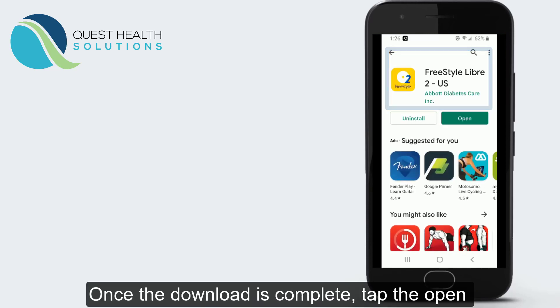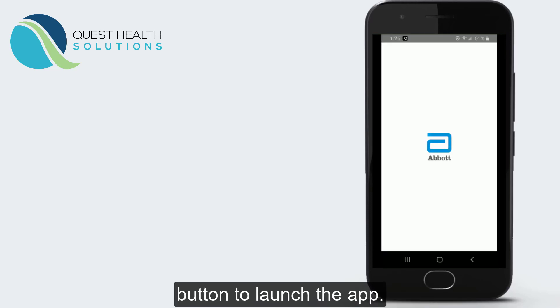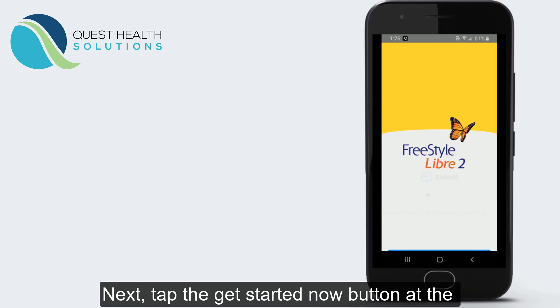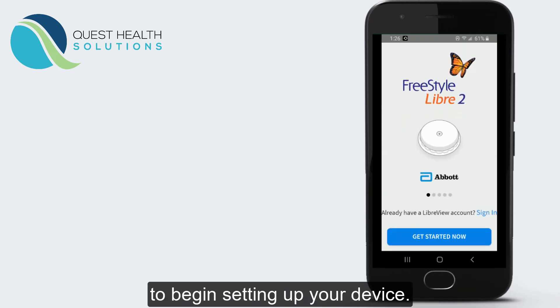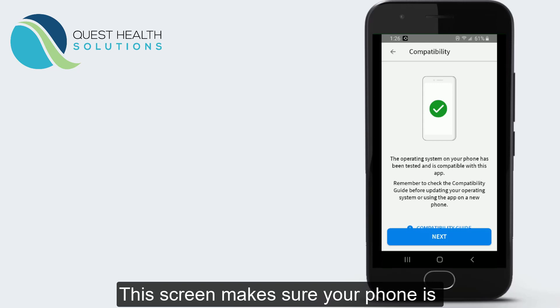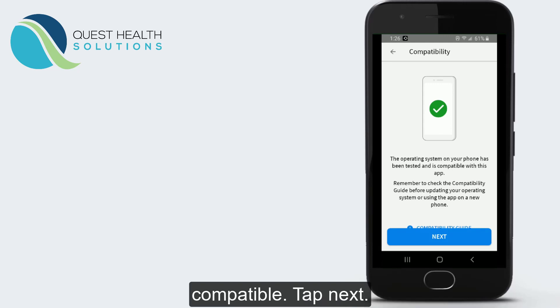Once the download is complete, tap the Open button to launch the app. Next, tap the Get Started Now button at the bottom of your screen to begin setting up your device. On this screen, make sure that your phone is compatible, then tap Next.